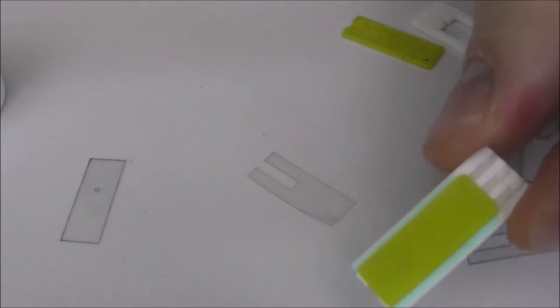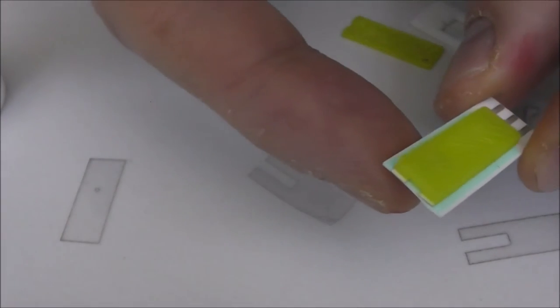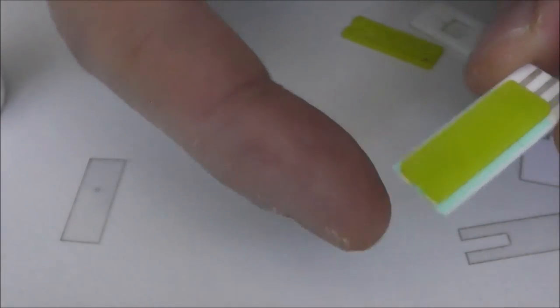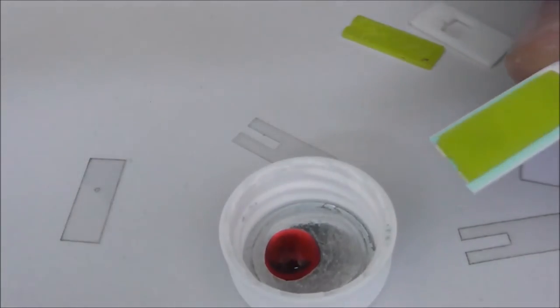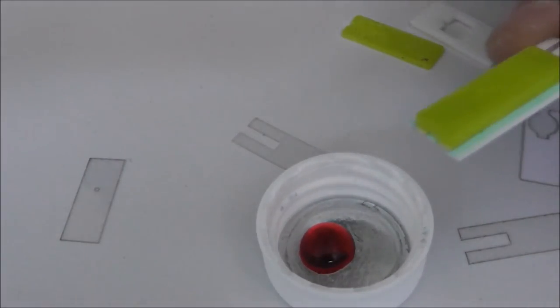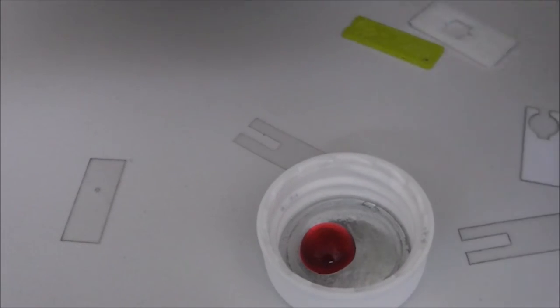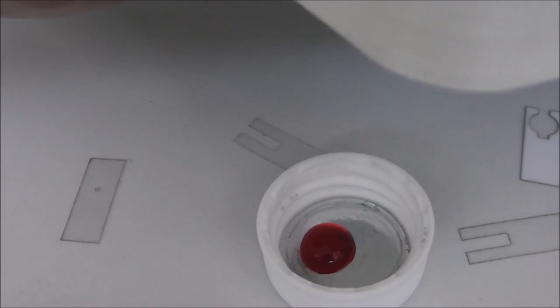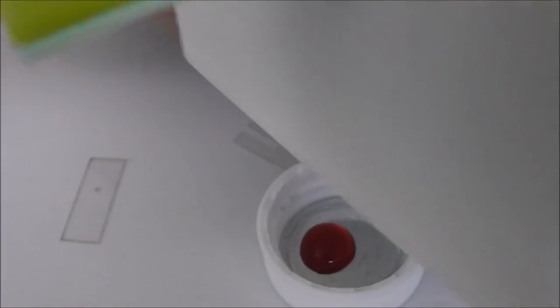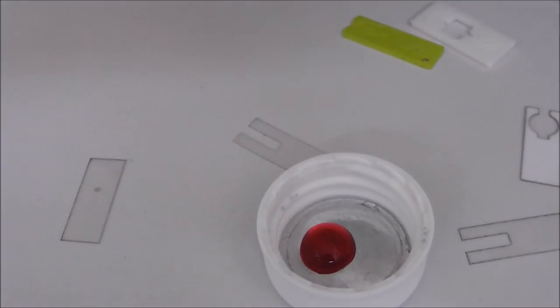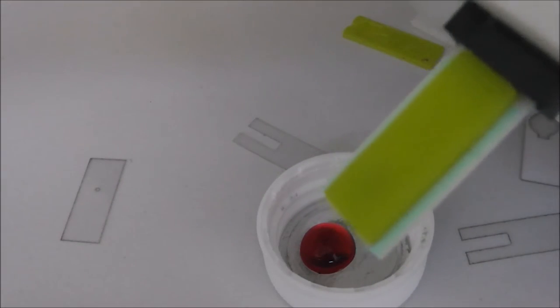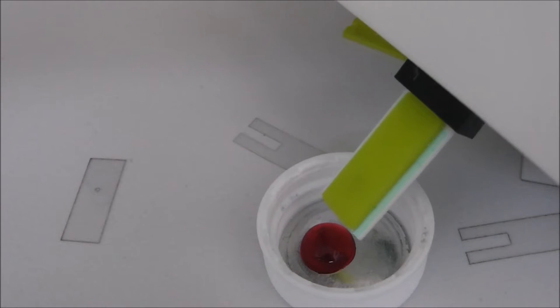Okay, so we've assembled the end fill biosensor and I have a dyed piece of aqueous just so you can kind of see the color change. What I'll do is I'll connect this just for my ease into one of our, we have a range of electronics for driving these kind of biosensors so I'm just using that to hold it. So what I'll do now is I'm just going to dip down into that.